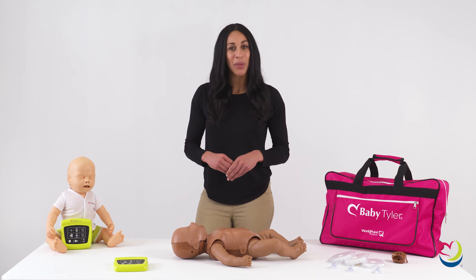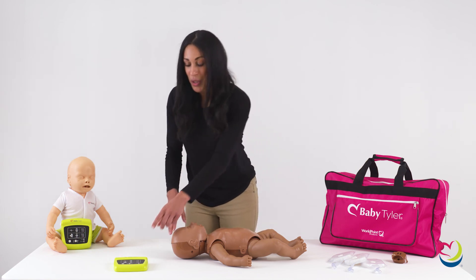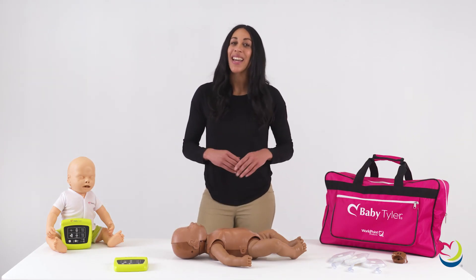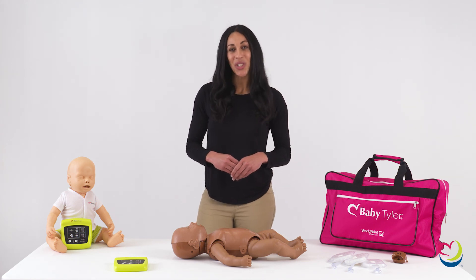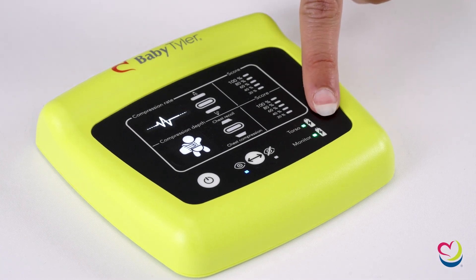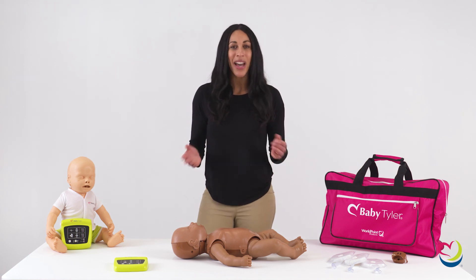When you perform CPR using blind mode, you will not see the indicator lights during the practice session, but you will see your score out of 100% given on the test report 10 seconds after the practice session has finished. Additional features on the CPR monitor include battery indicators for the torso and the monitor, making it easy to tell if you need to replace the batteries.